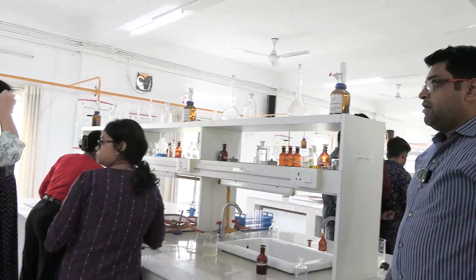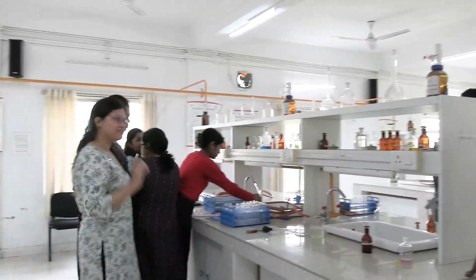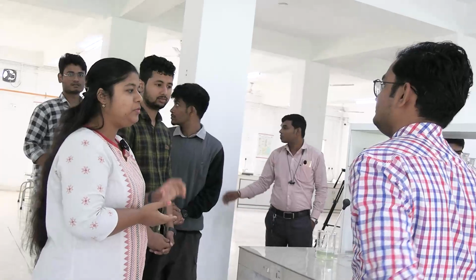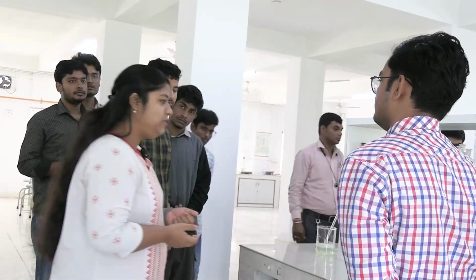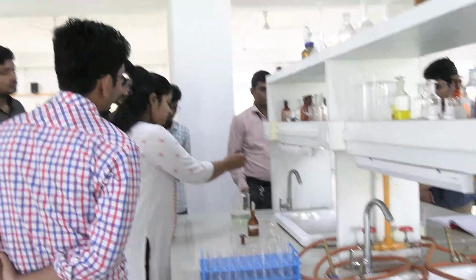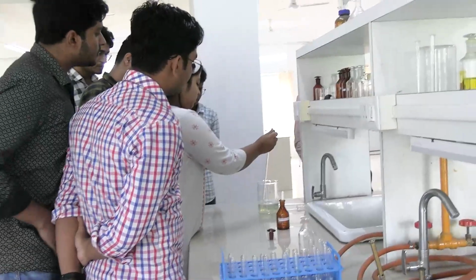Happy? You have written your practicals? Heat and acetic acid test. So why do we do the heat acetic acid test? Coagulum will form. So protein will be denatured and we will find a cloudiness, right? So we will take sample.